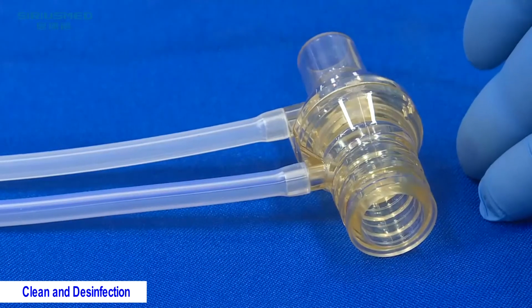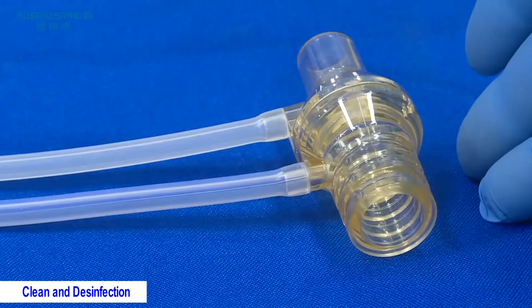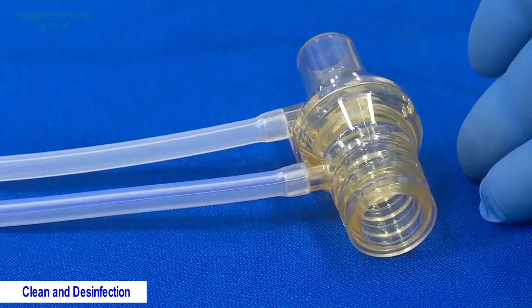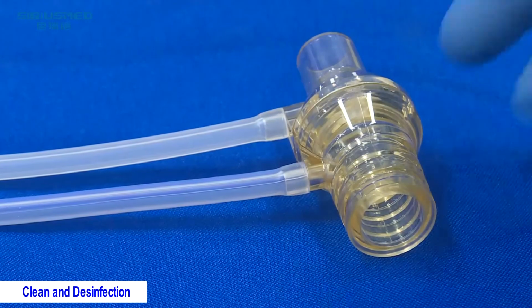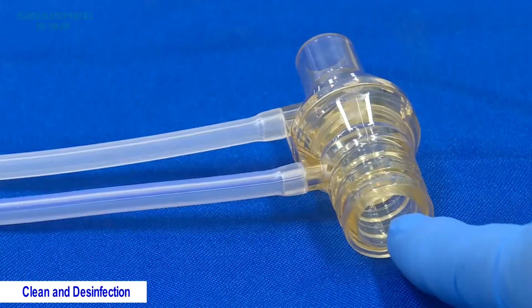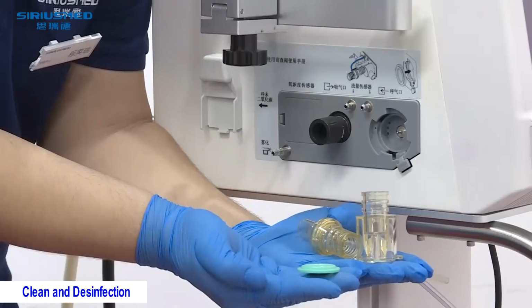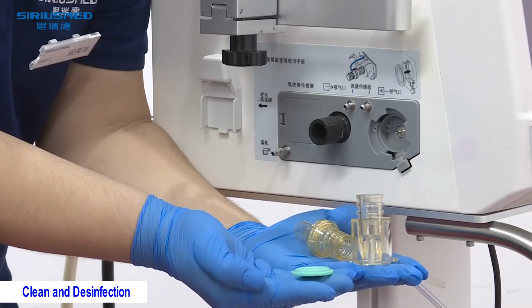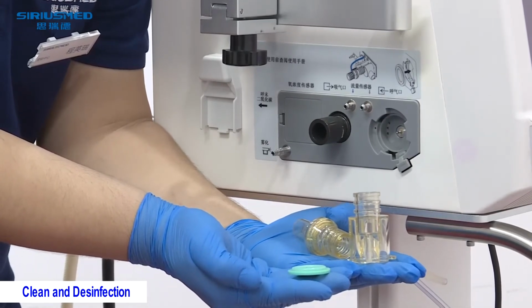And pay attention to the probe inside. It cannot be flushed with water or other high pressure. If anything inside is damaged, it cannot be used normally. After the cleaning and disinfection, we need to reassemble this probe and valves.